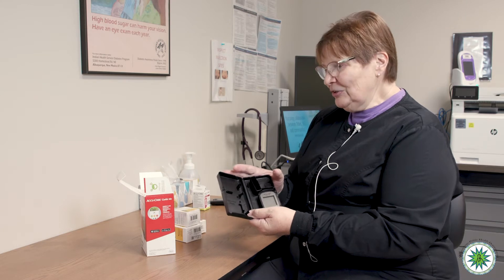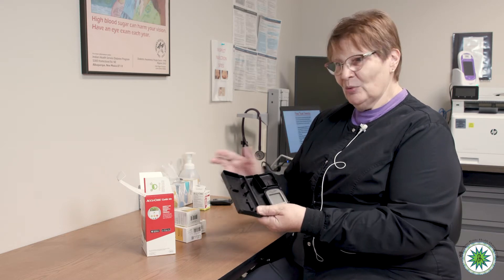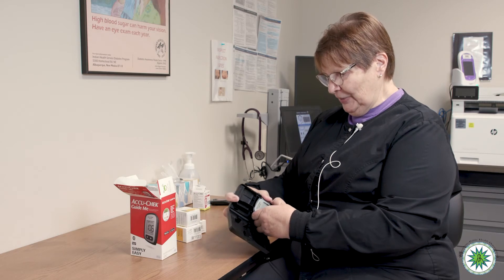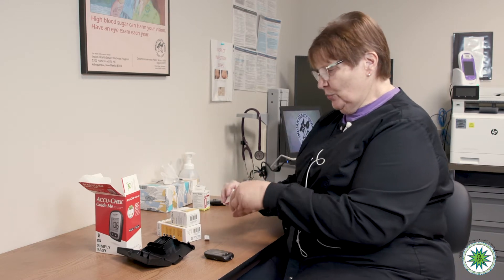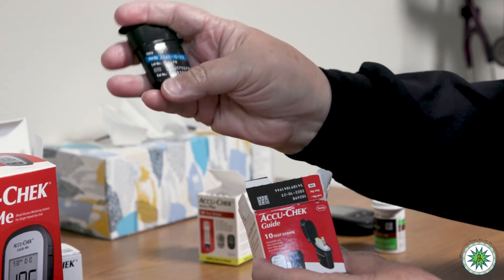When you get the meter — either from the outpatient nurses, the pharmacy, or myself — this is what will be in the box: just the case and the meter. To do a test of your blood sugar with this meter, you need the Guide Me and the AccuCheck Guide test strips. These are different as well. When someone teaches you how to use this meter, we'll start with a package of strips that just has 10 — that's just for demonstrating. Your provider will order the strips and they'll come in a box or container of 50.